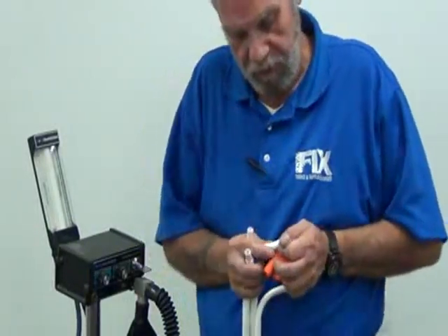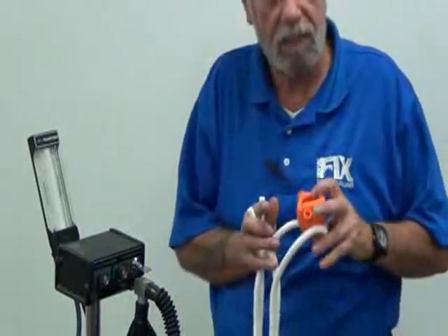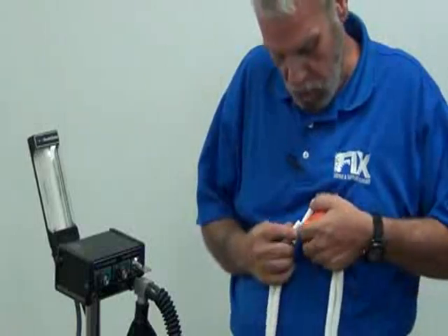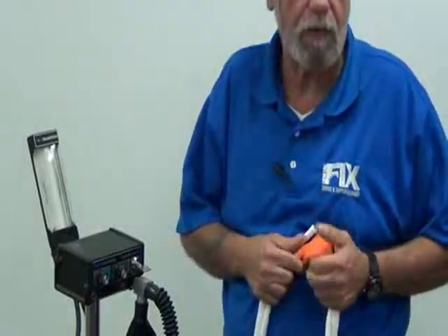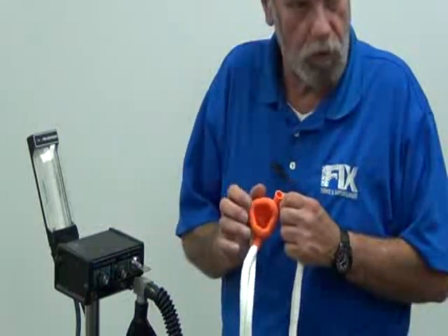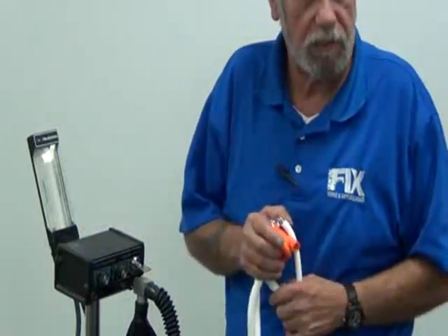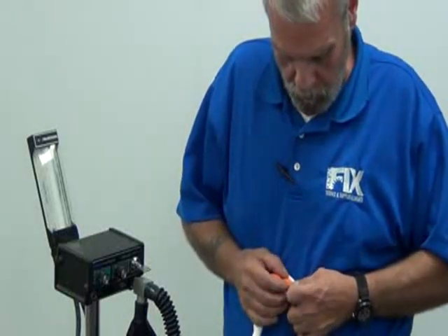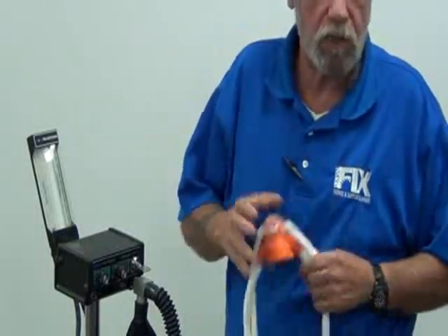It cuts down having to clean this, because if you don't clean this mask, the nose piece and nasal hood between patients, and you have a patient that wears a lot of makeup or has a lot of facial oil, it's going to show on this rubber part, and it's not very hygienic. There are several cleaning products to clean the nose piece between uses, or it's better yet just to change the nose piece out.